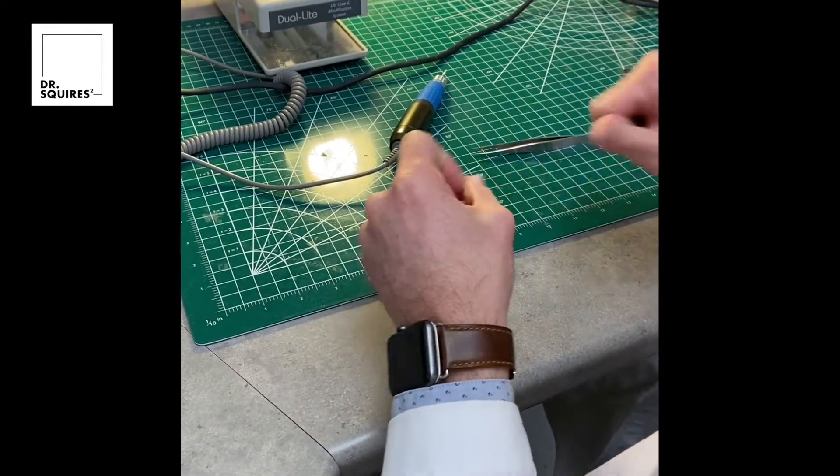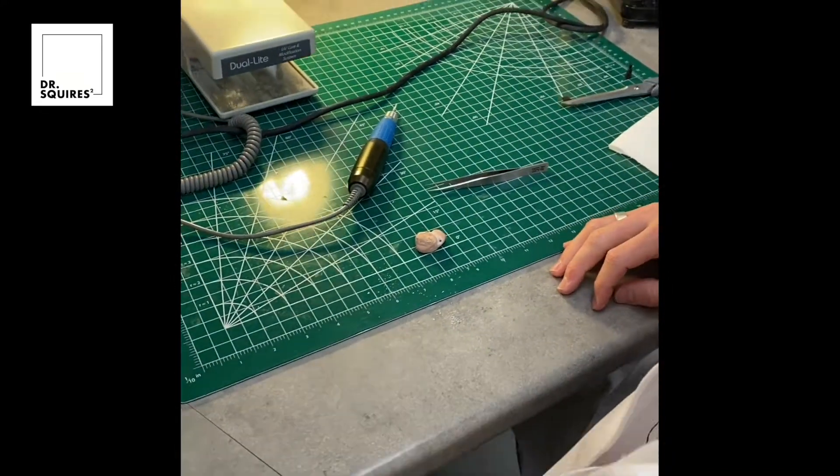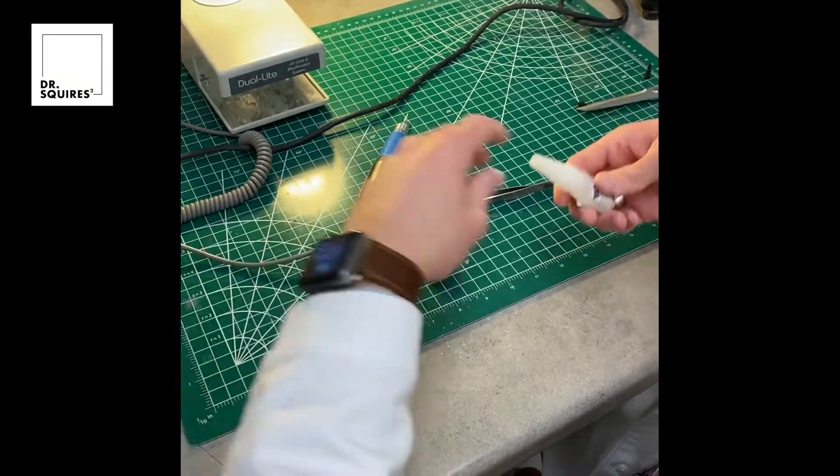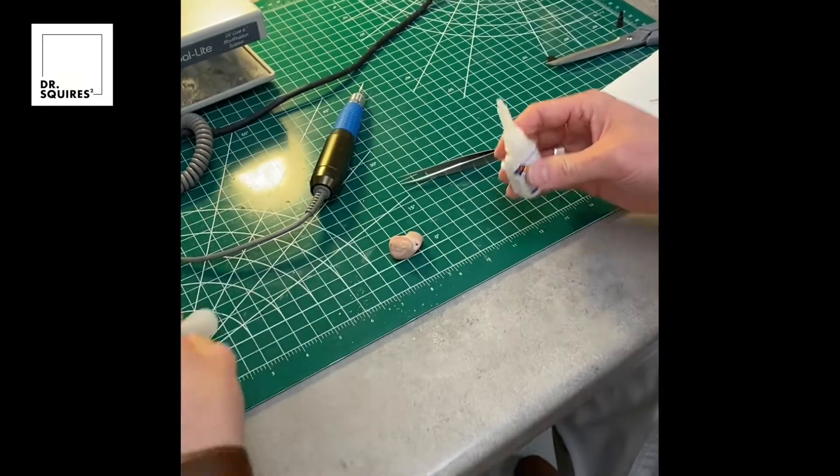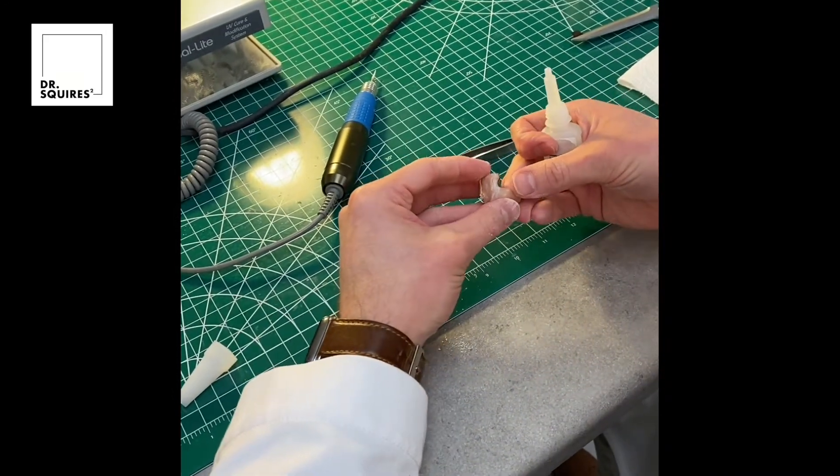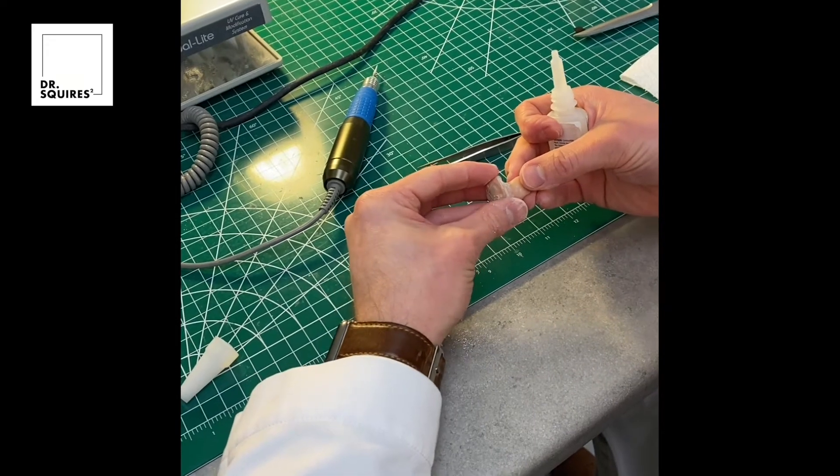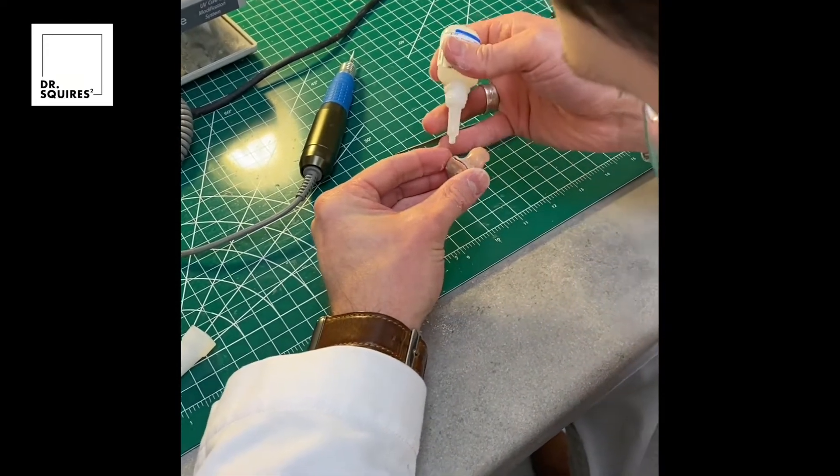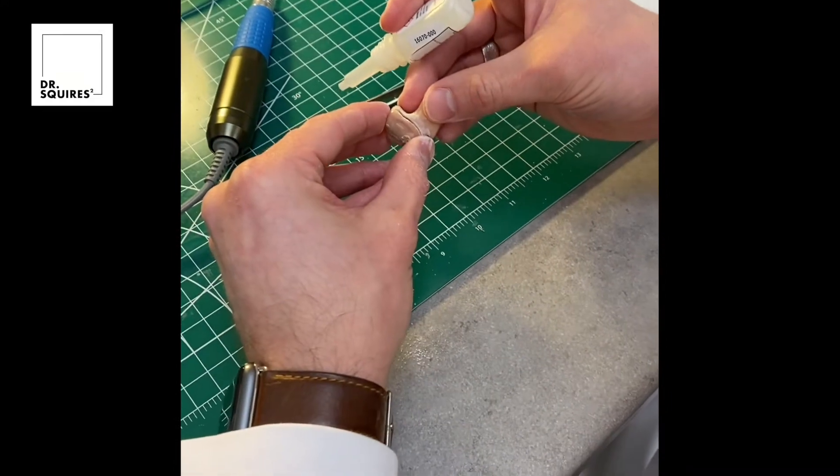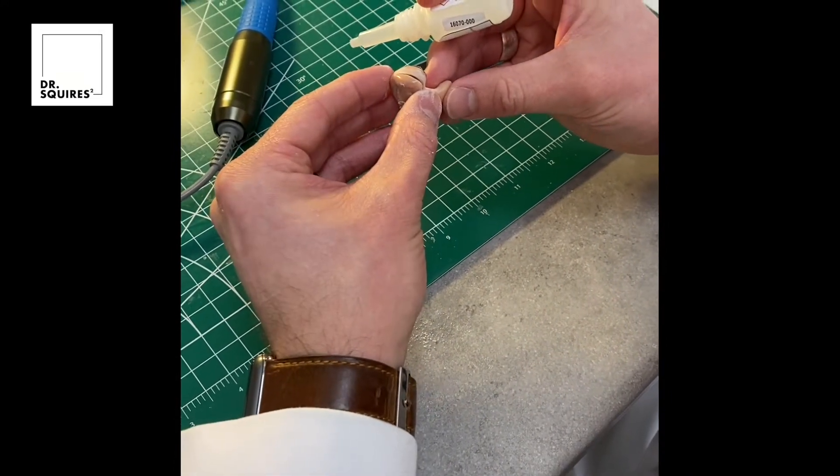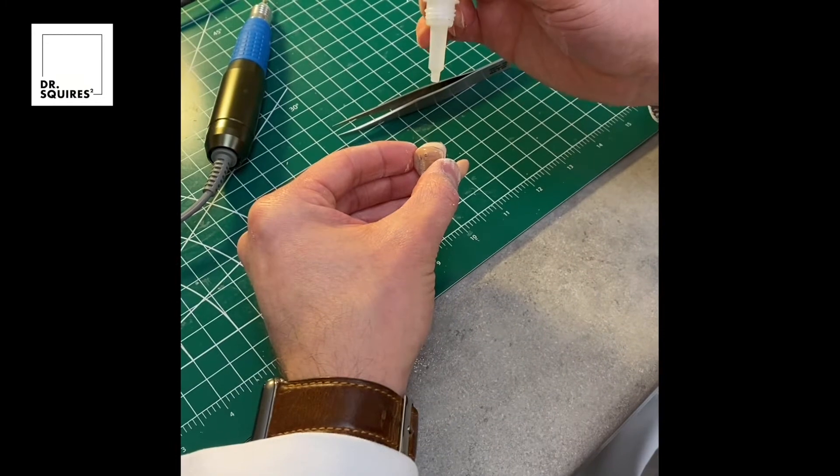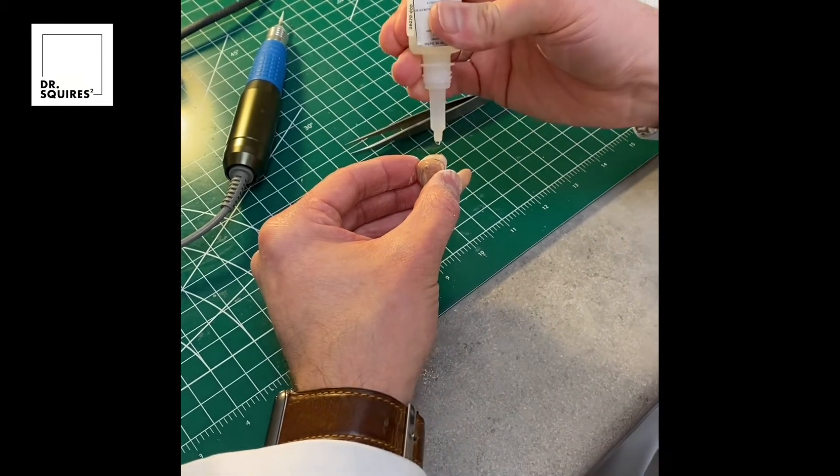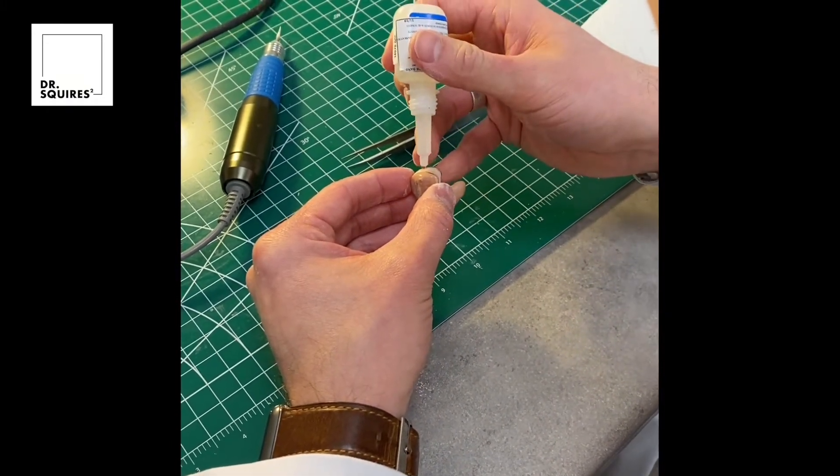While I was cleaning this off here, I realized that that face plate had separated again and needed to be adhered back into place while we're going to finish the rest of this repair. You can see I'm just slightly pulling that face plate back just a little bit so that we can sneak that instant adhesive in there. Just a little tiny bit will do, just to hold everything in place while we're finishing the rest of that repair.